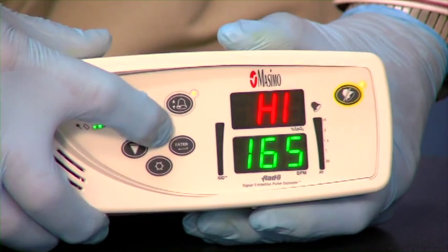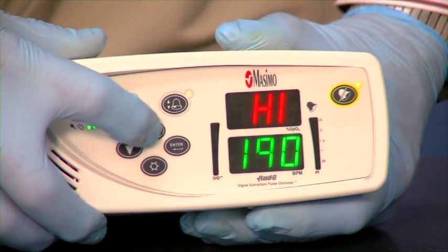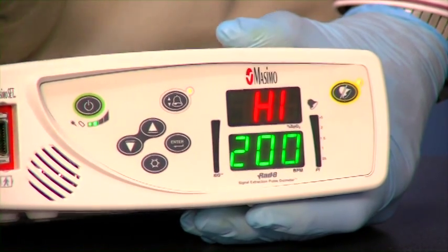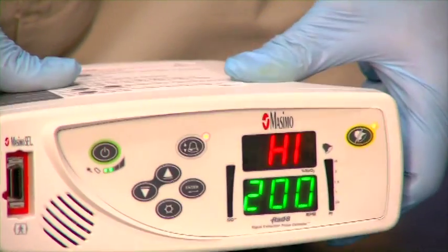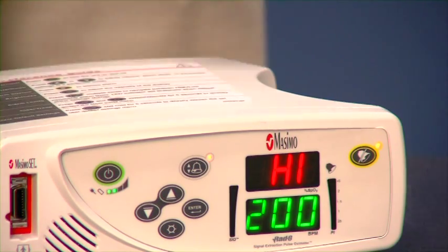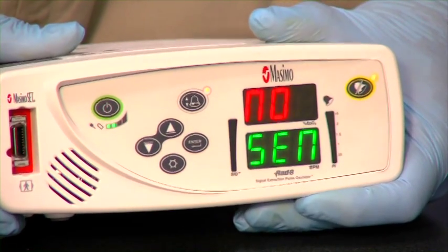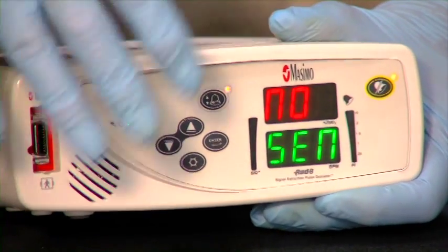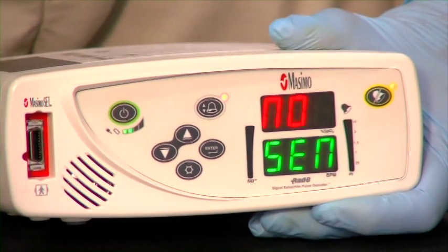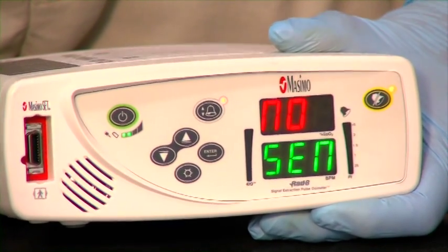We're going to increase the high heart rate up to 200. You'll see it goes up in increments of 5. We can enter it in, or we can simply leave it alone for a few seconds and it will return to the main screen. Now, before we take it out and put it on the patient, we want to lock that machine so that nobody can adjust the parameters that we've set.